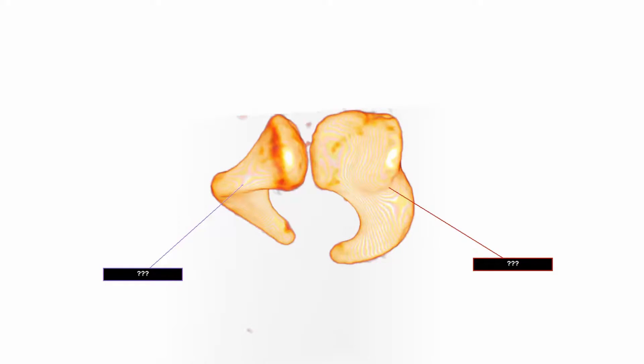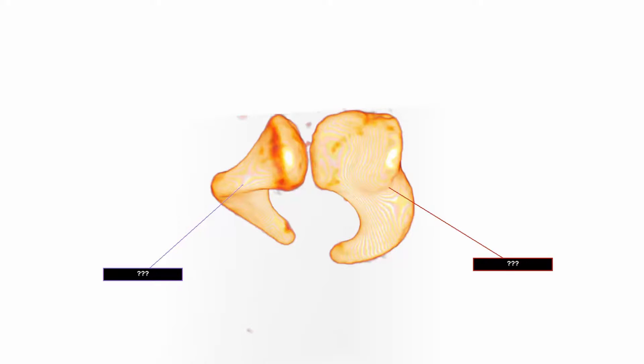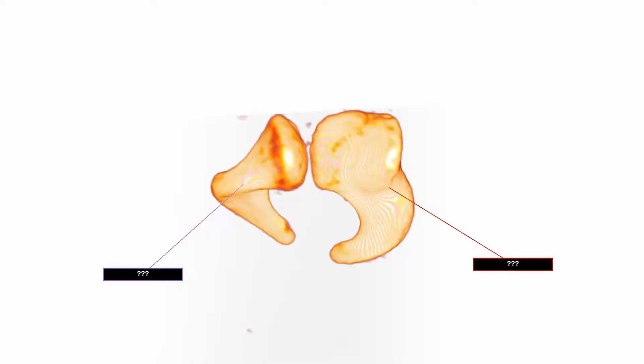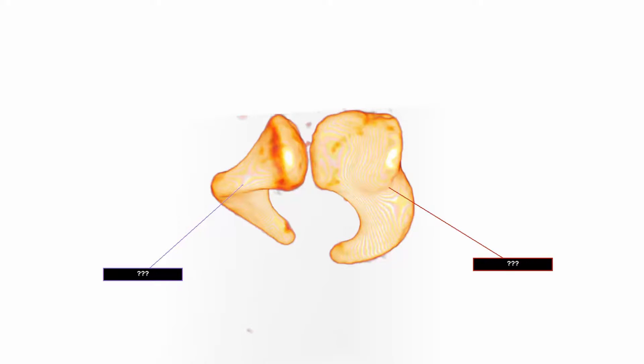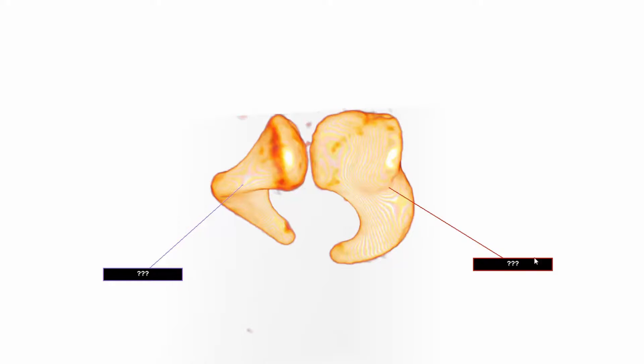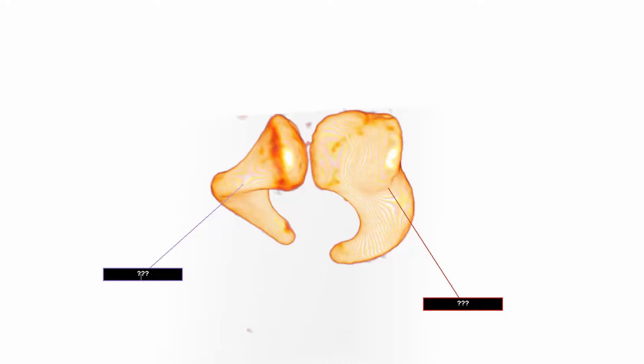I've used several clipping planes, or virtual cuts, to isolate these two bones from the rest of the volume. I've highlighted the two bones we've been looking at by annotating them.